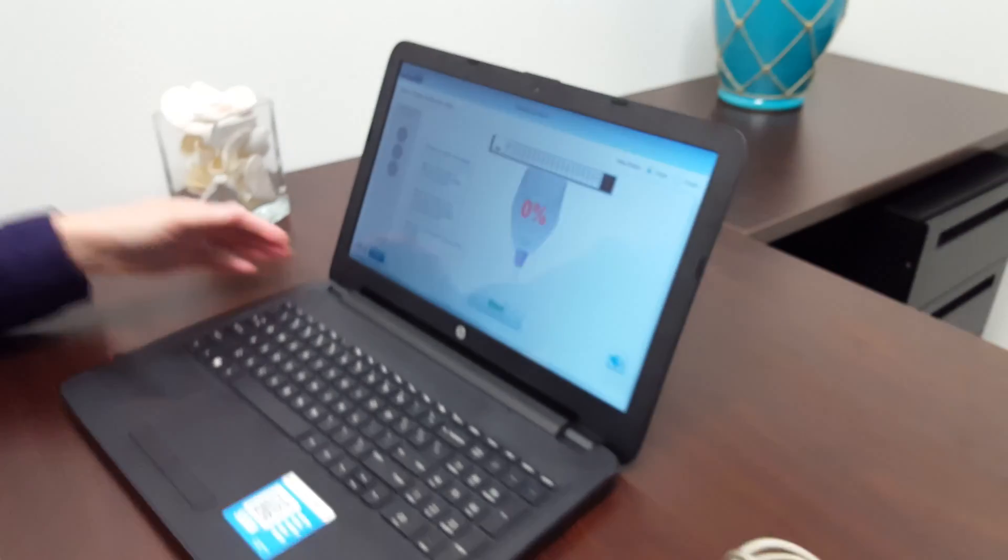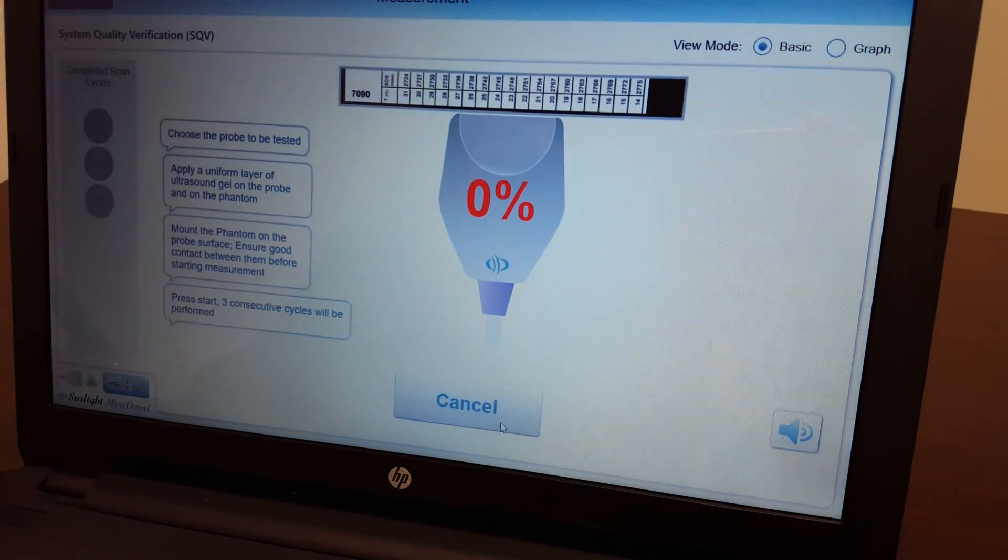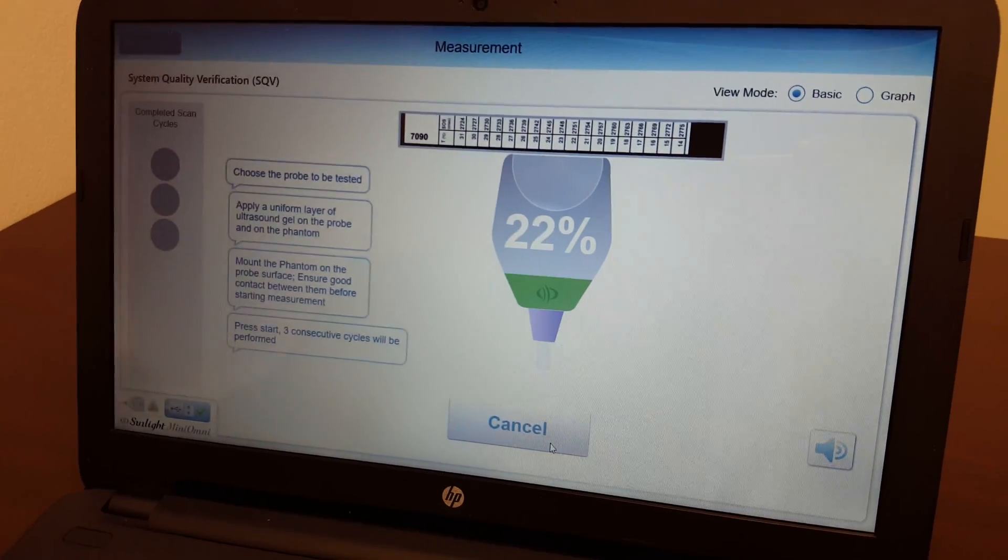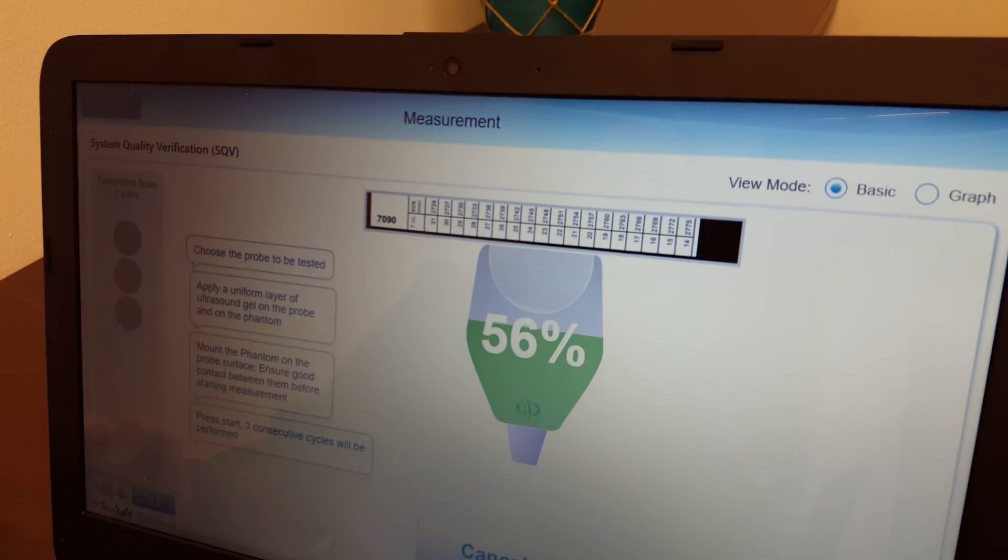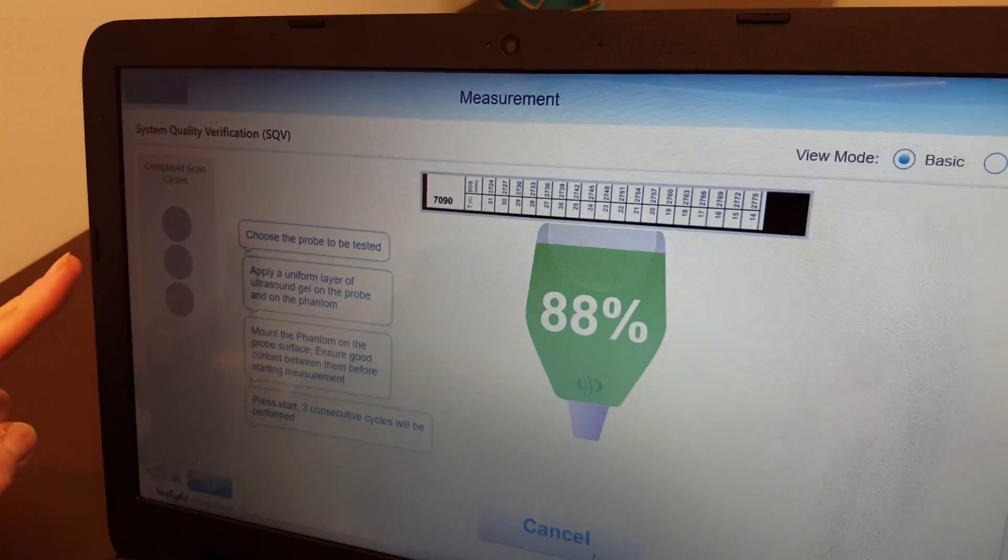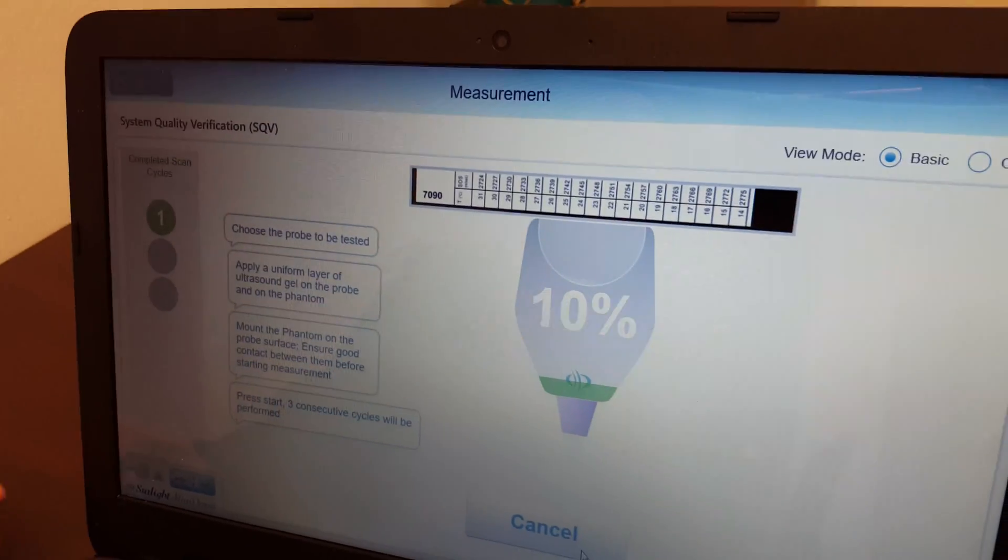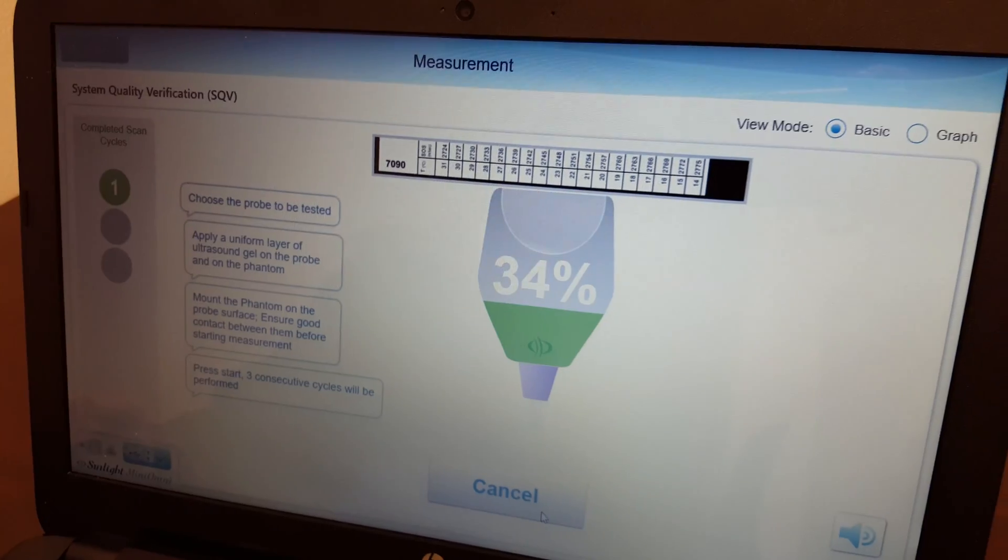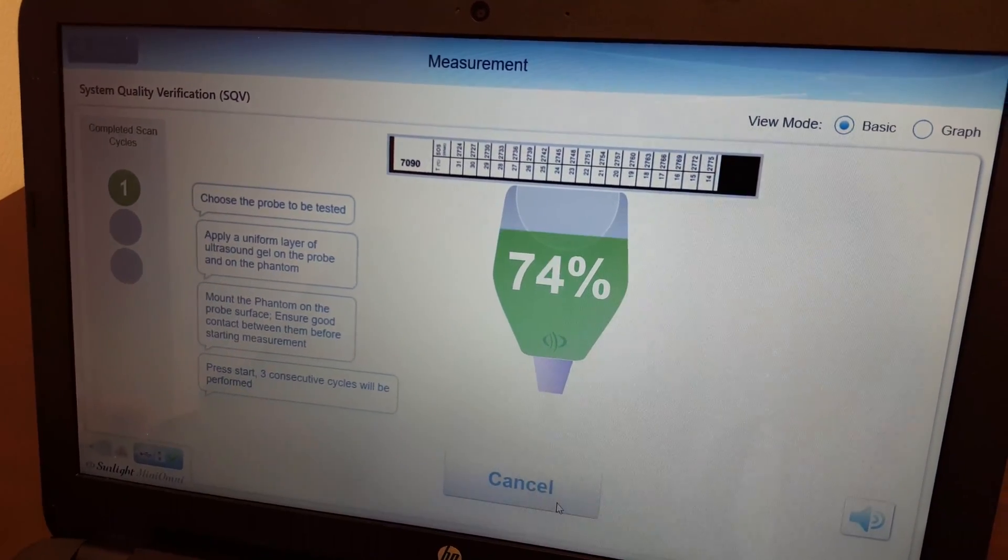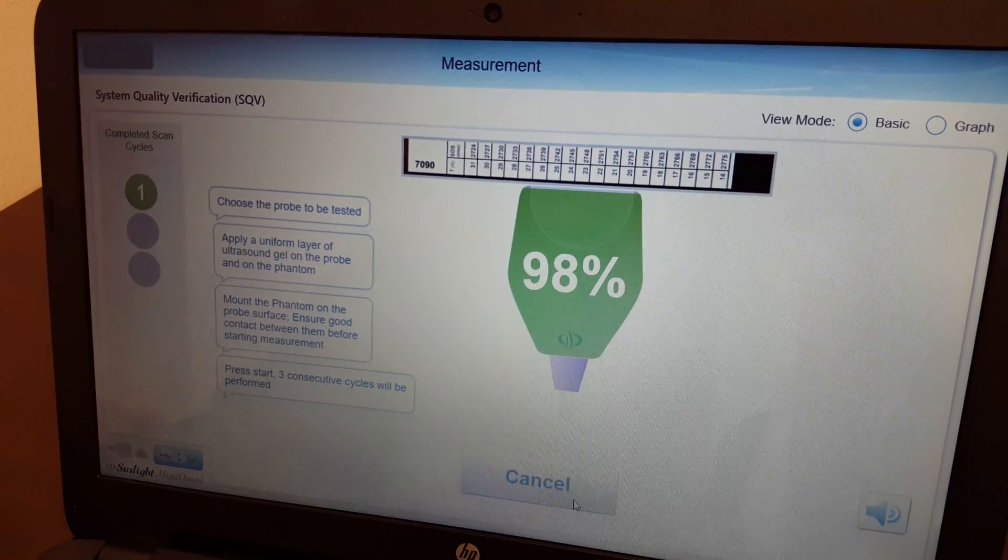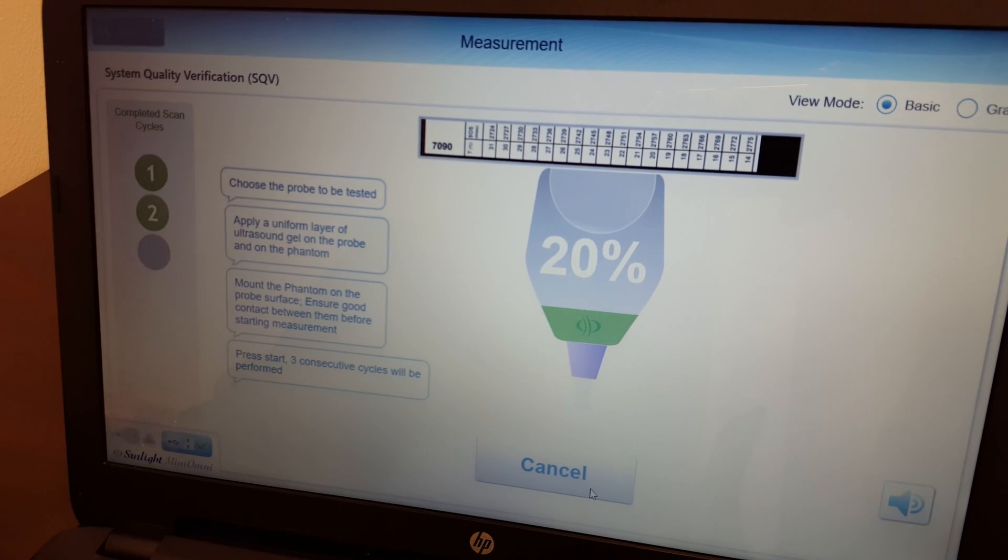Then simply go to your software again and you're going to press start. Everything else is done for you here. You just wait a few moments. This will go to three cycles fairly quickly here, and you'll see the third cycle on the side.